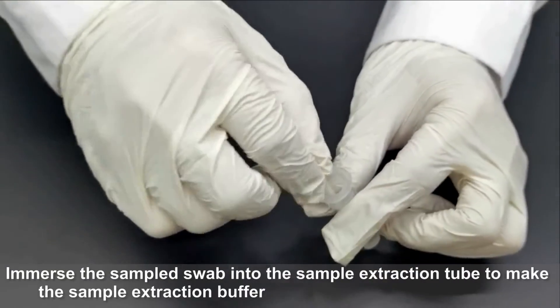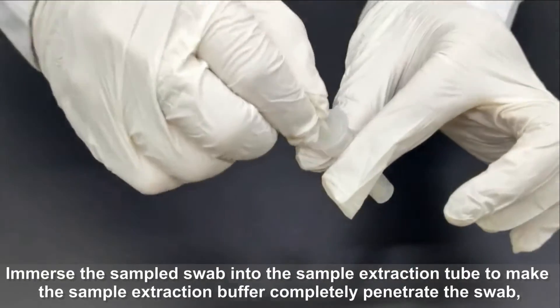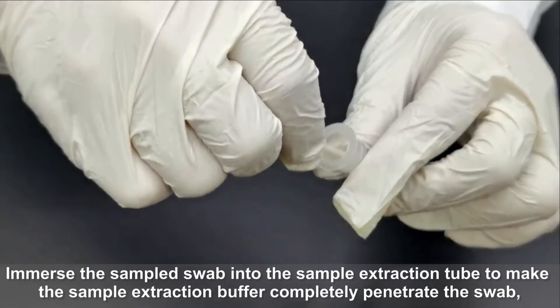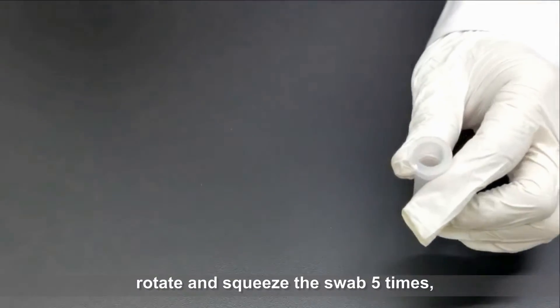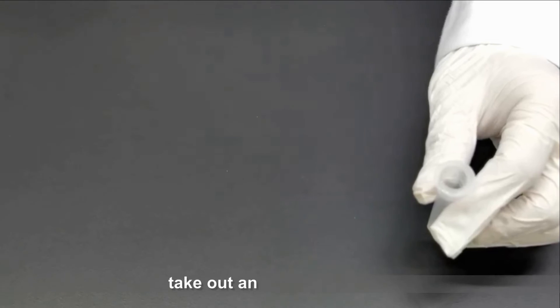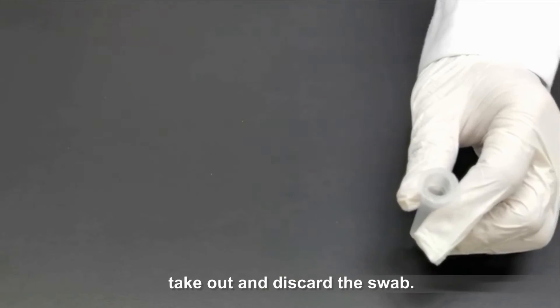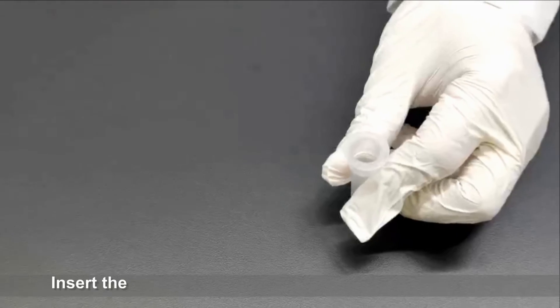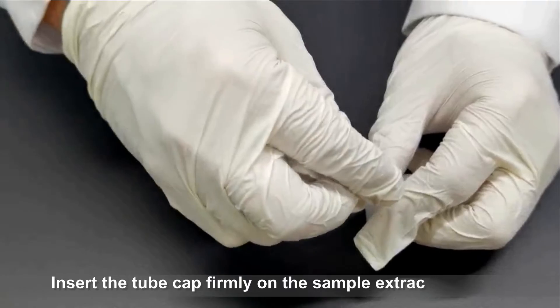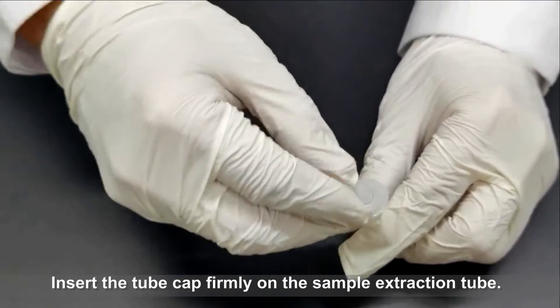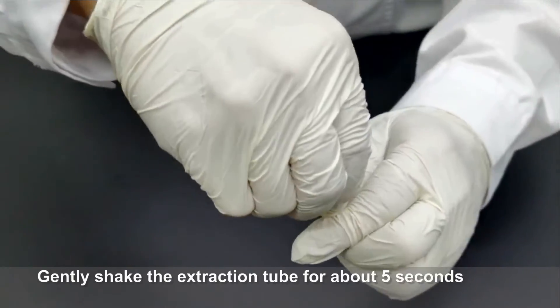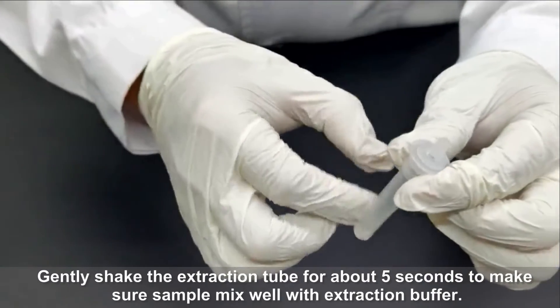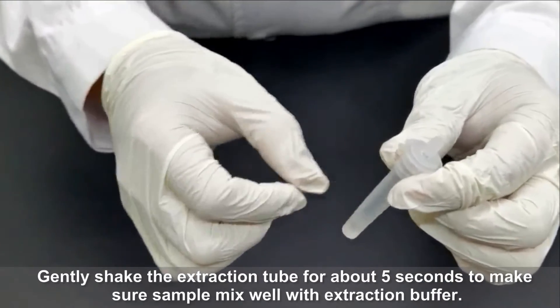Take out and discard the swab. Insert the tube cap firmly on the sample extraction tube. Gently shake the extraction tube for about 5 seconds to make sure the sample mixes well with extraction buffer.